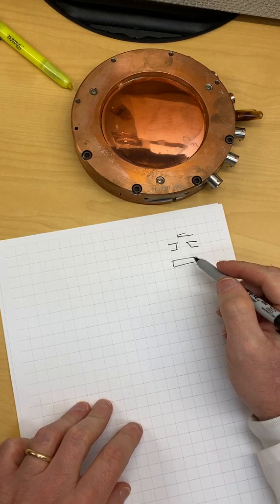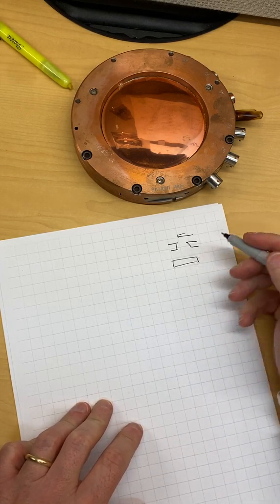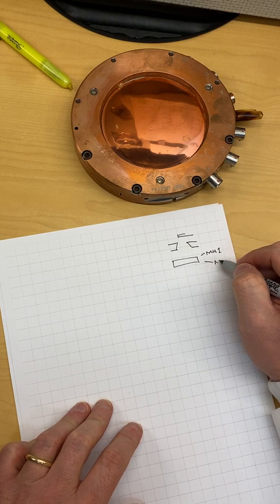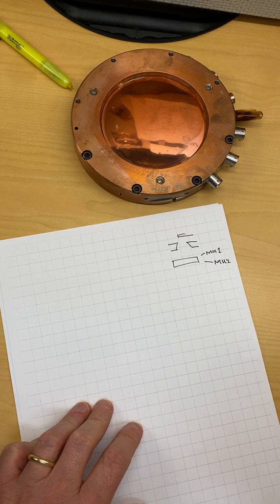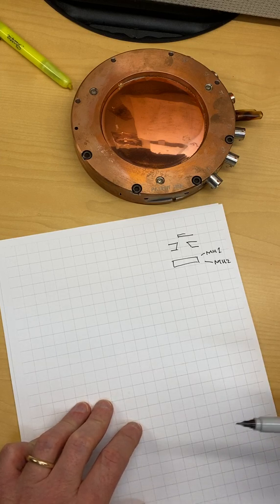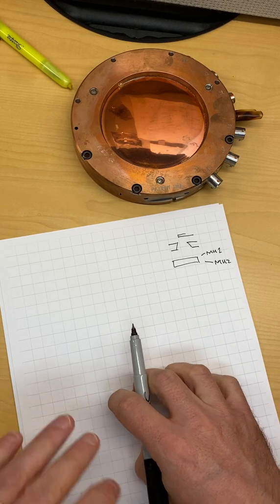There are different layers to the monitor chamber. You'll get MU1 reading out of it and MU2 reading out of it - so two independent readings out of the monitor unit chamber. Those two readings are compared one to the other. If MU1 doesn't agree with MU2 within a certain tolerance, the beam gets shut off.